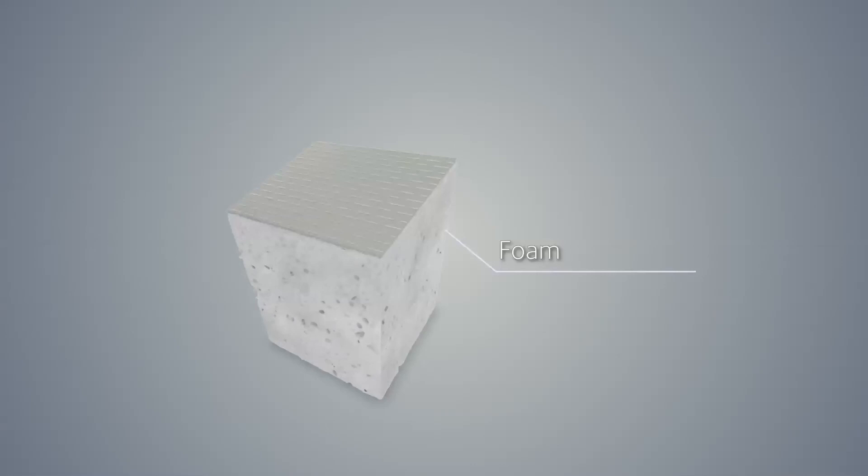A wound facing 2mm open cell foam matrix, a polyurethane bonding layer, and a temporary sealing membrane to physiologically close the wound.